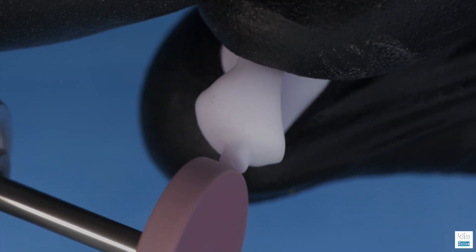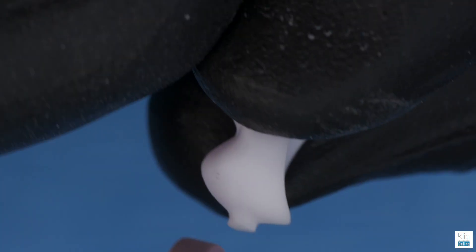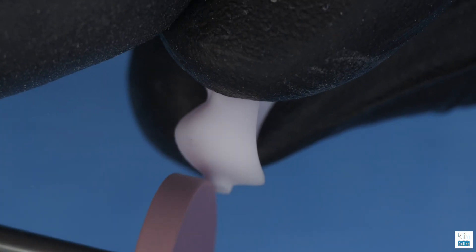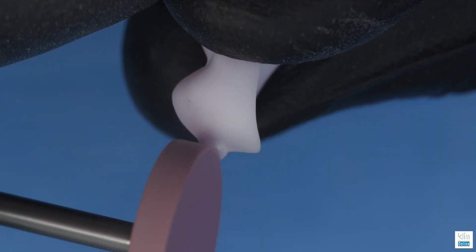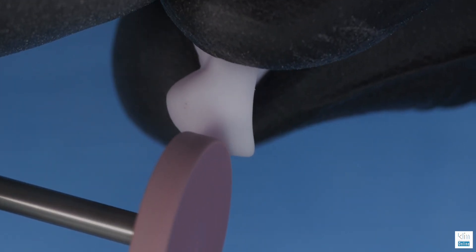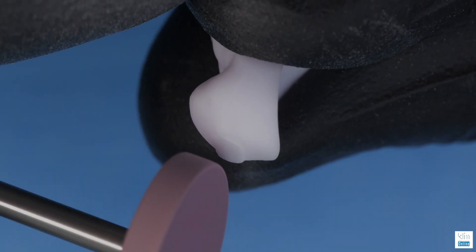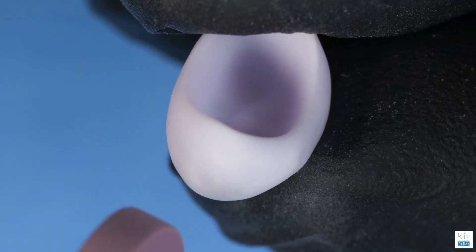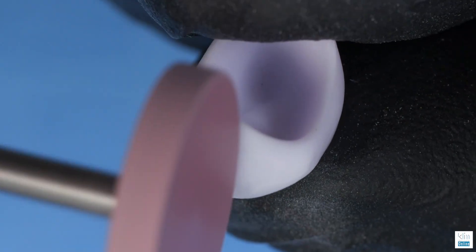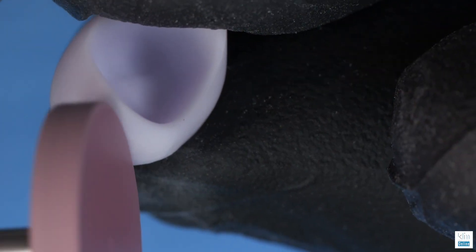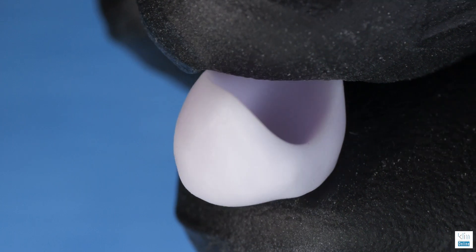We clean up the holding bar with the pink diamond wheel. This is designed not to overheat the ceramic. Notice there is some dust that you see here, so protect yourself with the mask, and particularly if you can get a vacuum system to collect the dust. You can also get tabletop vacuums now. I have that in my training center and it really keeps things clean.